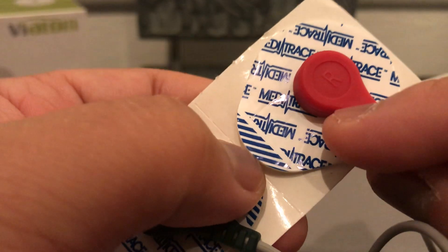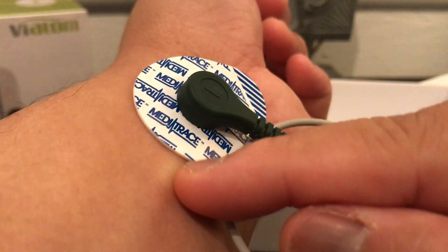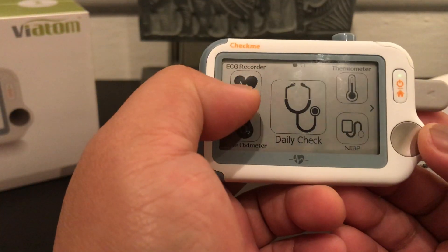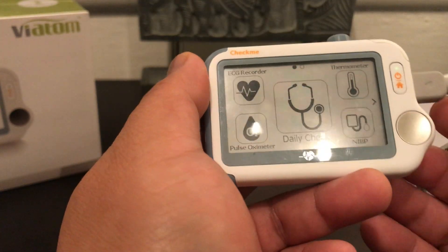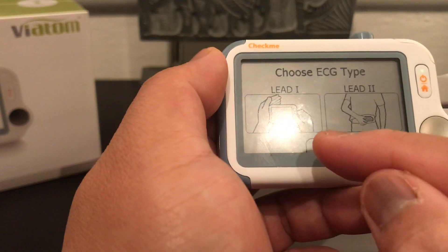It tells you this one is the right, so we're going to put it on my right like this, and this one goes on your left. You can also put these on your upper right chest and lower left abdomen. I have the leads connected — let's check the EKG using the external cables. Click the icon, go to the next page.